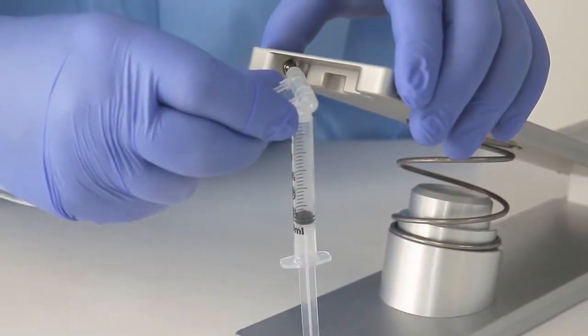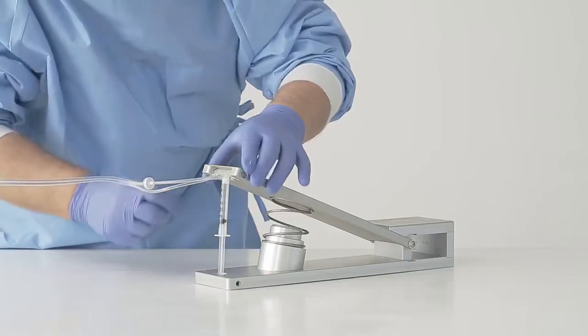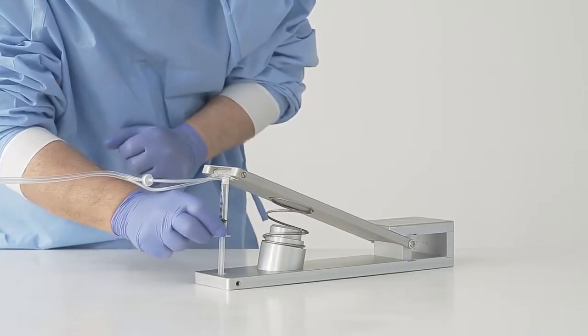The manifold is brought to the corresponding recess in the upper plate, loading it without compressing the upper plate.